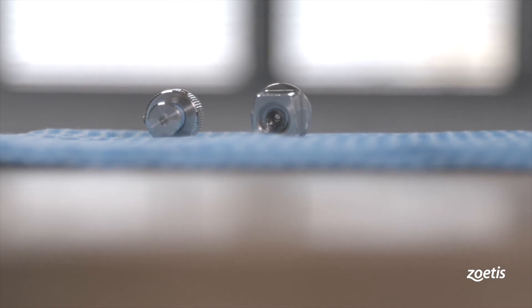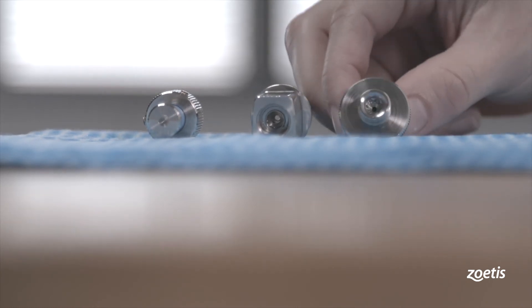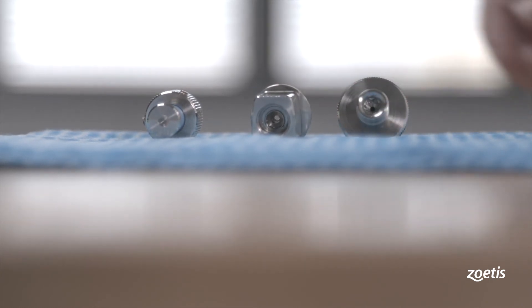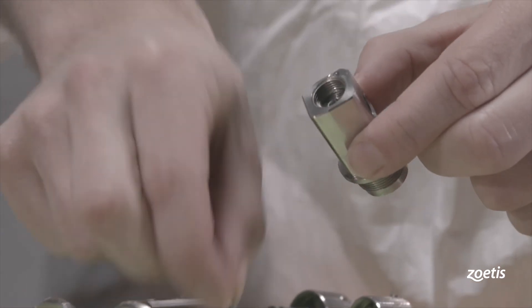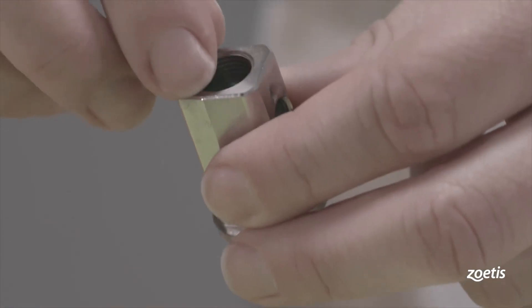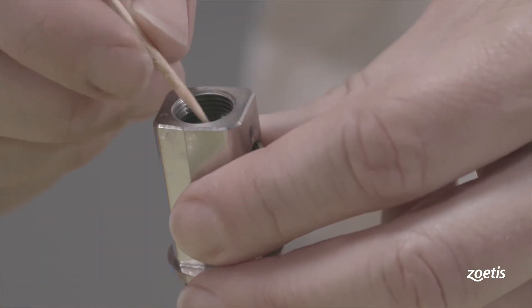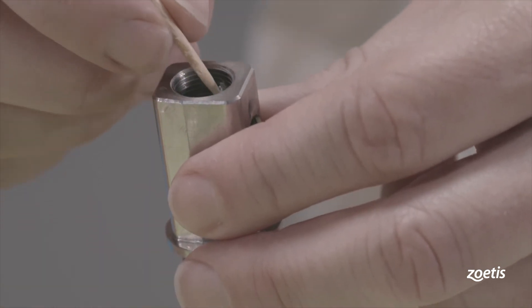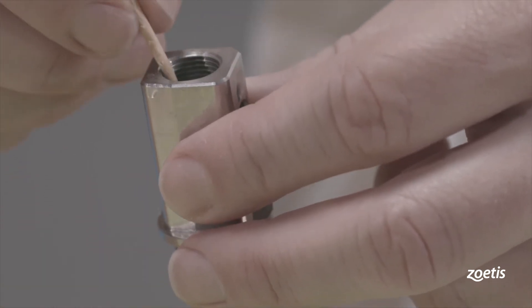Moisture within an assembled syringe may cause corrosion. Replace all of the spare parts such as O-rings and valves with new ones.